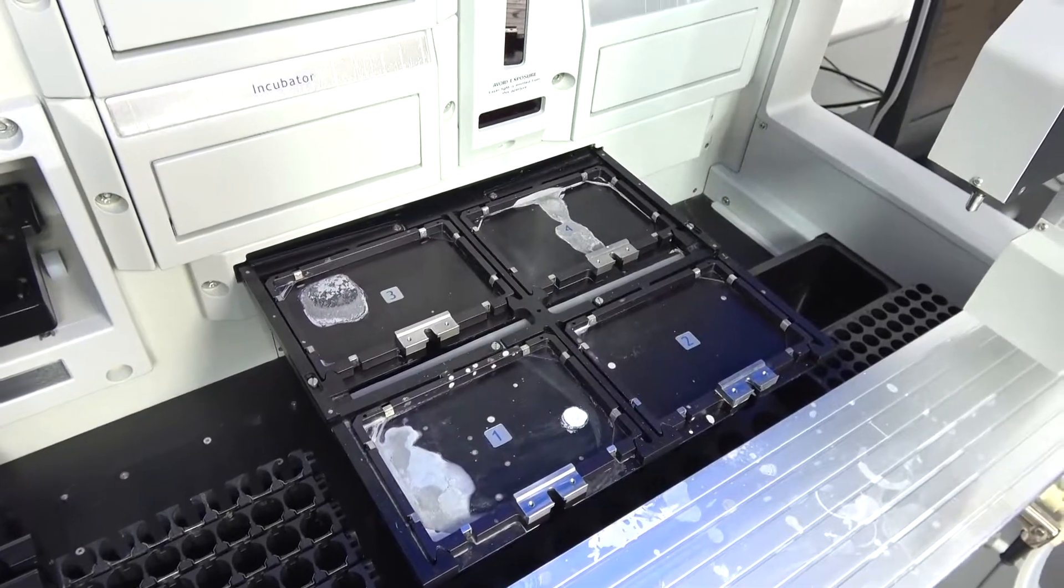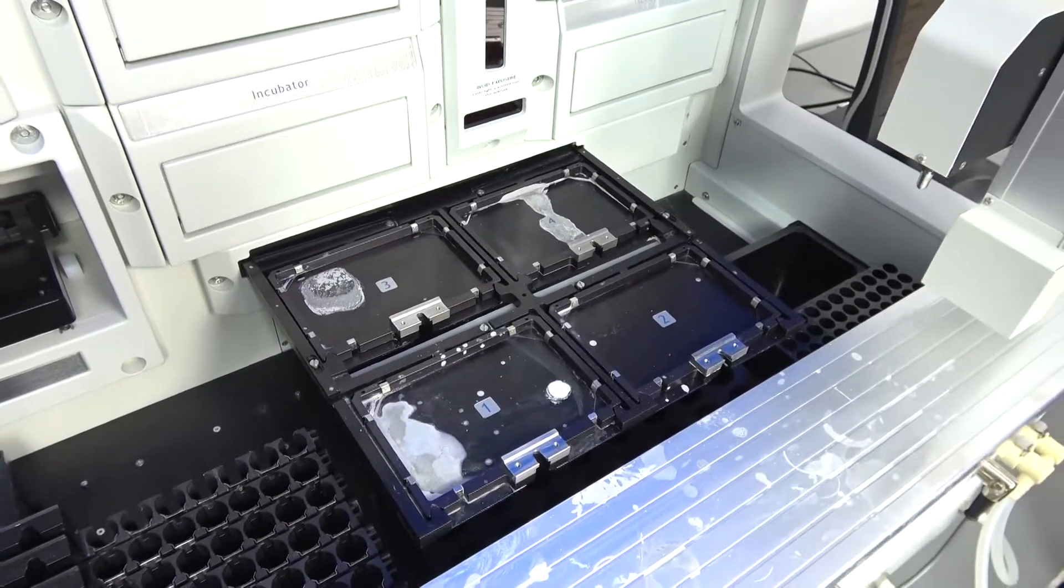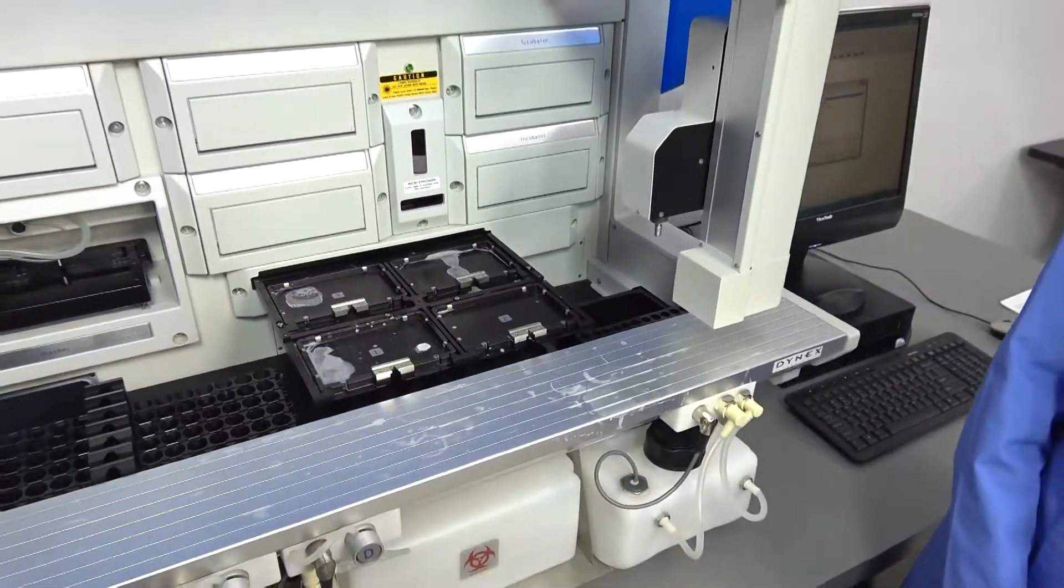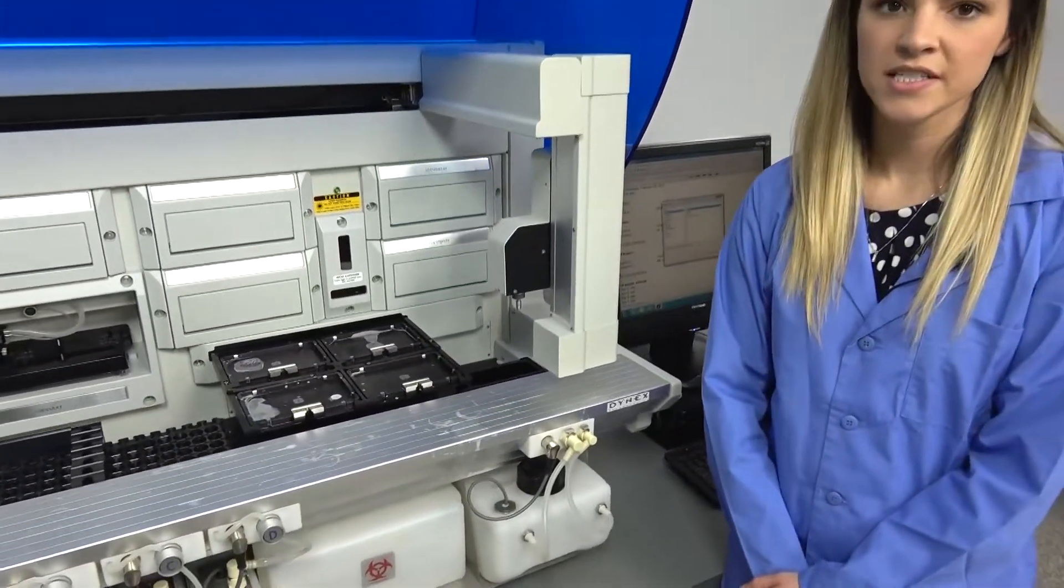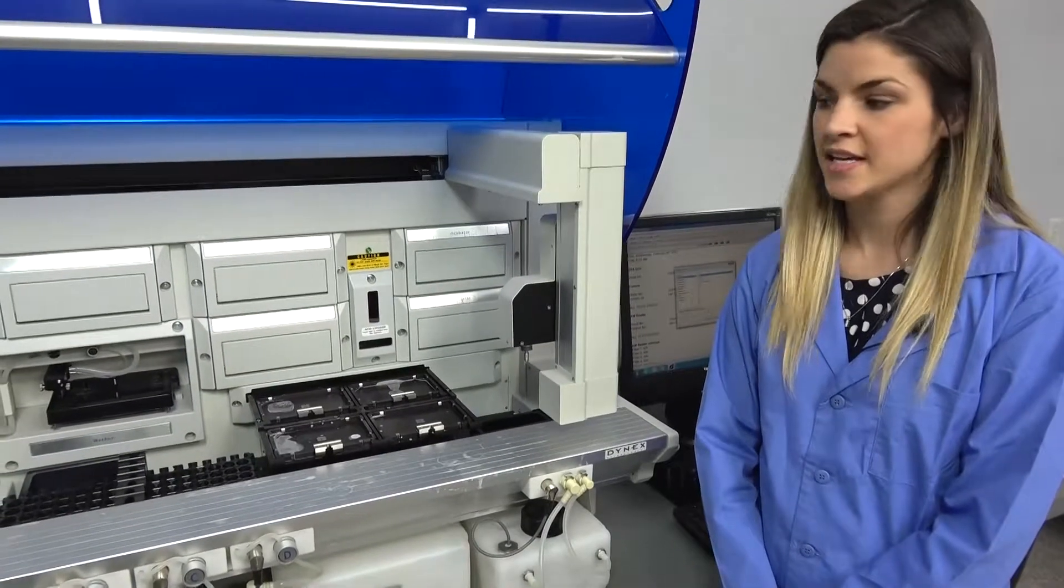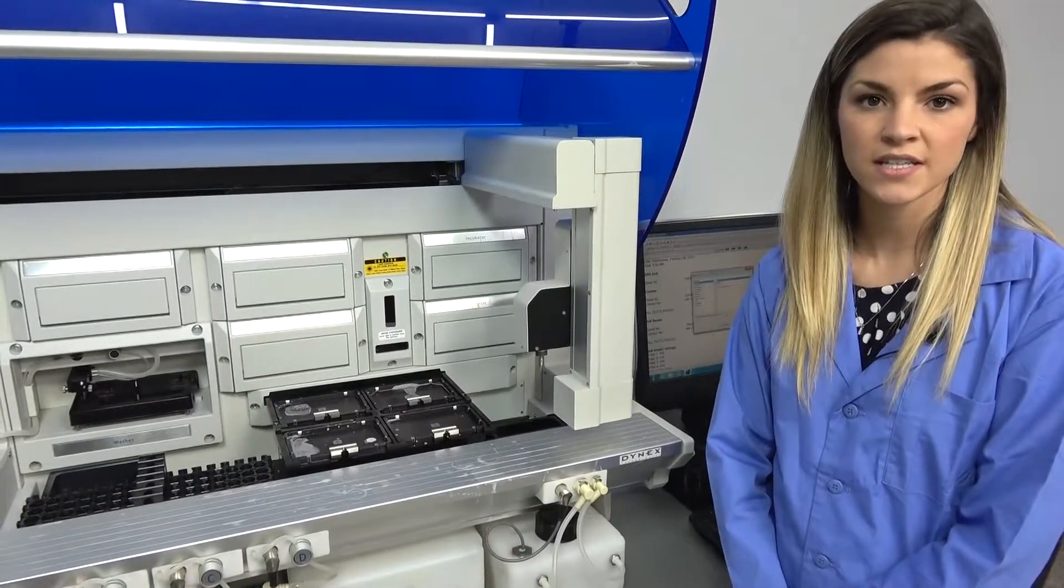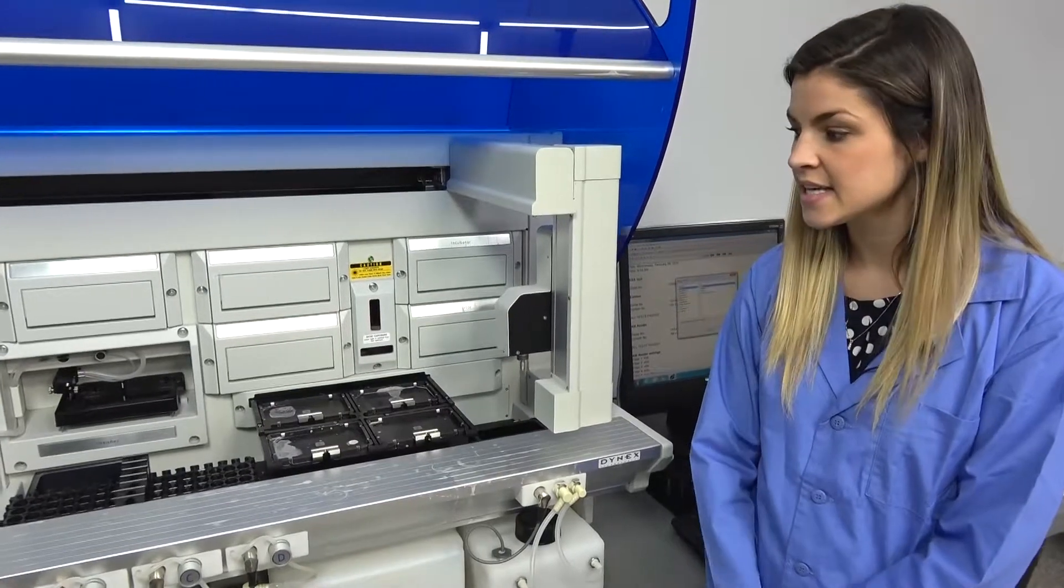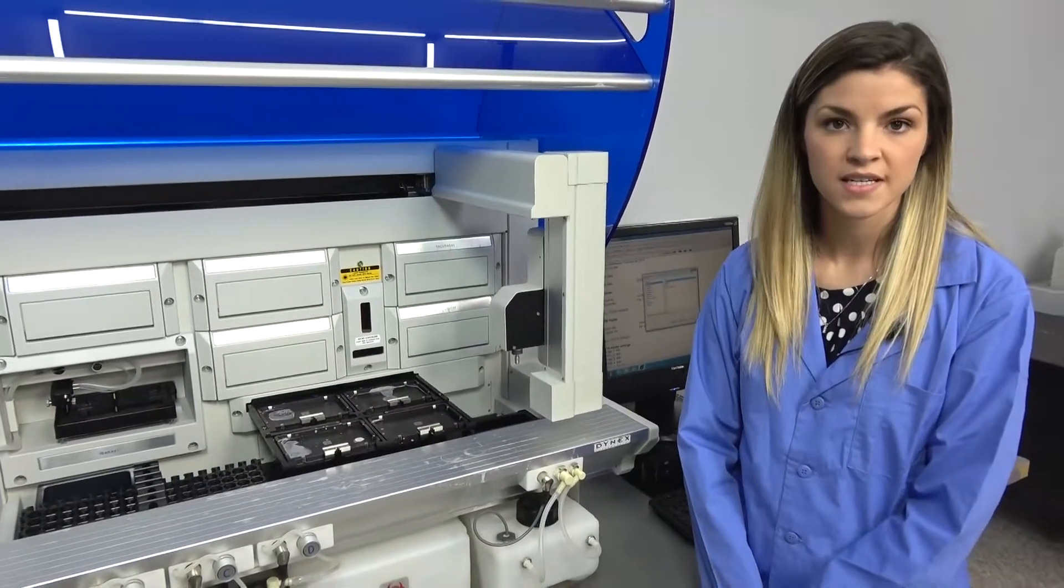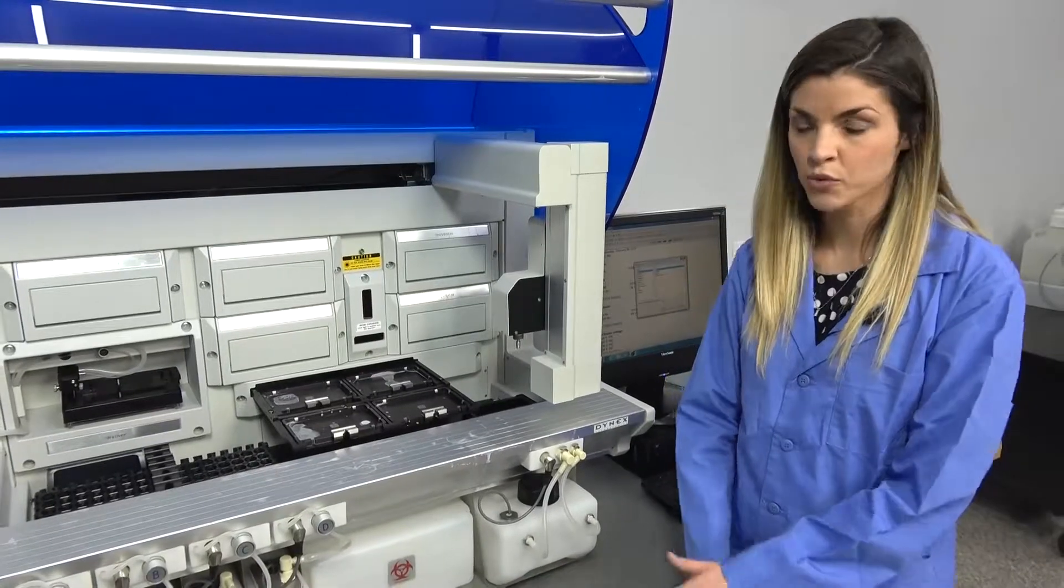All of these are cosmetic issues. This doesn't affect the functionality of this machine. This unit has been tested by our technicians here at our facility, and all of the modules have ran self-diagnostic testing and everything passes. This unit is flawless in how it works. It's very operational.